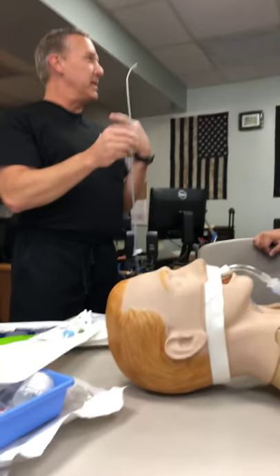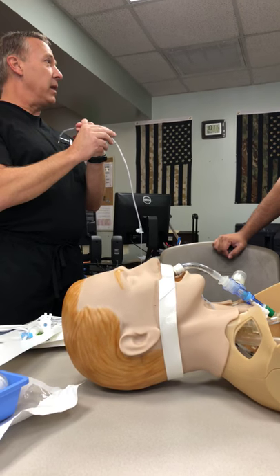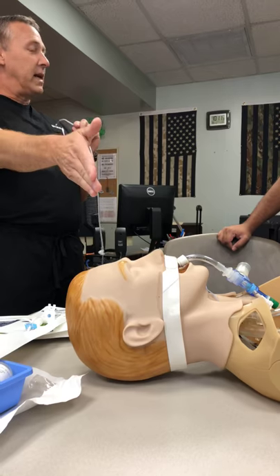It's a little less atraumatic when we insert it, and it does give us the option of going right or left side of the airway, which most of them will only go right side.